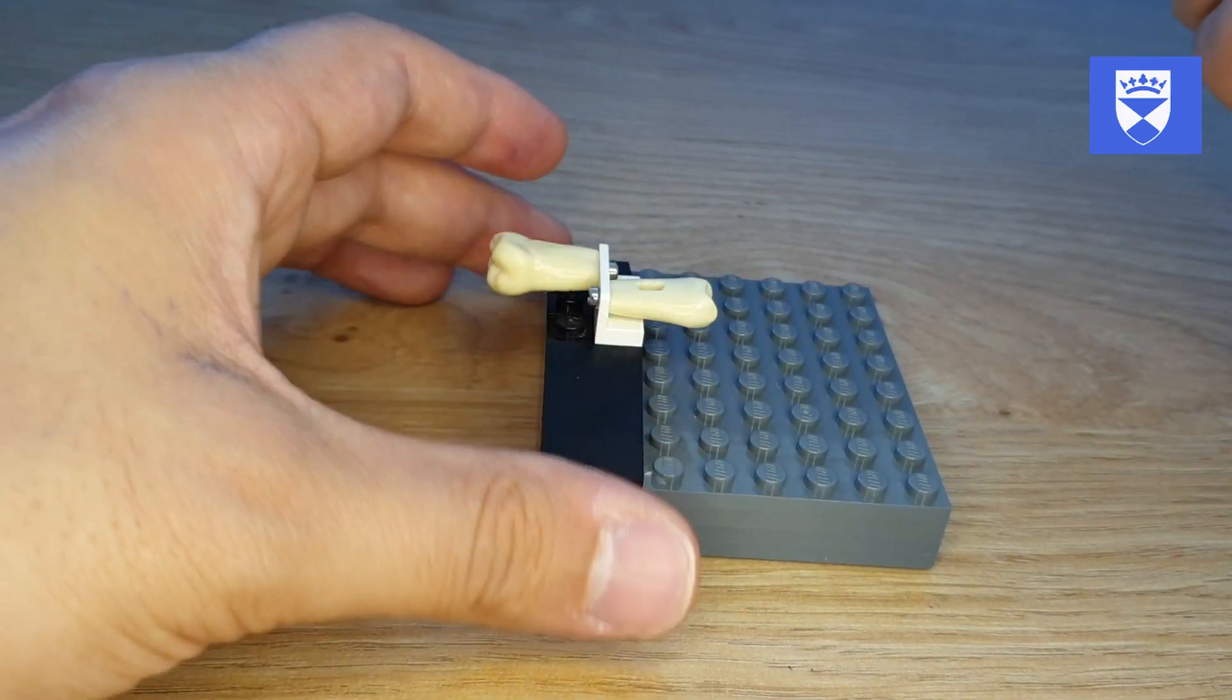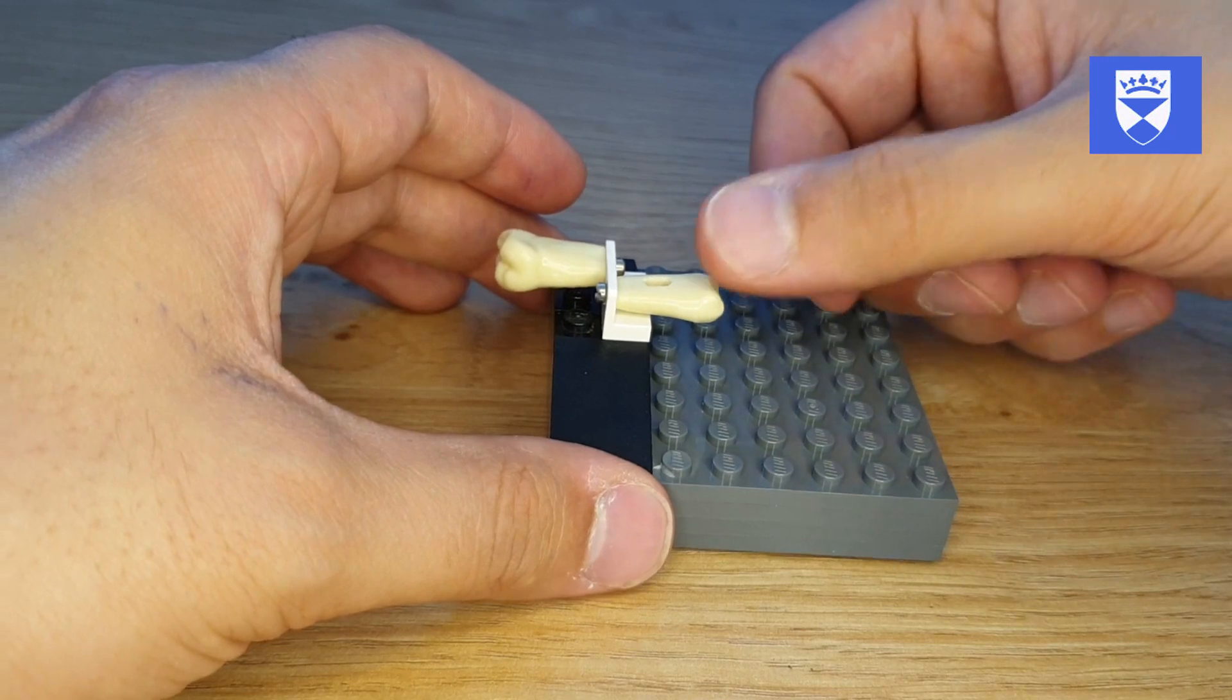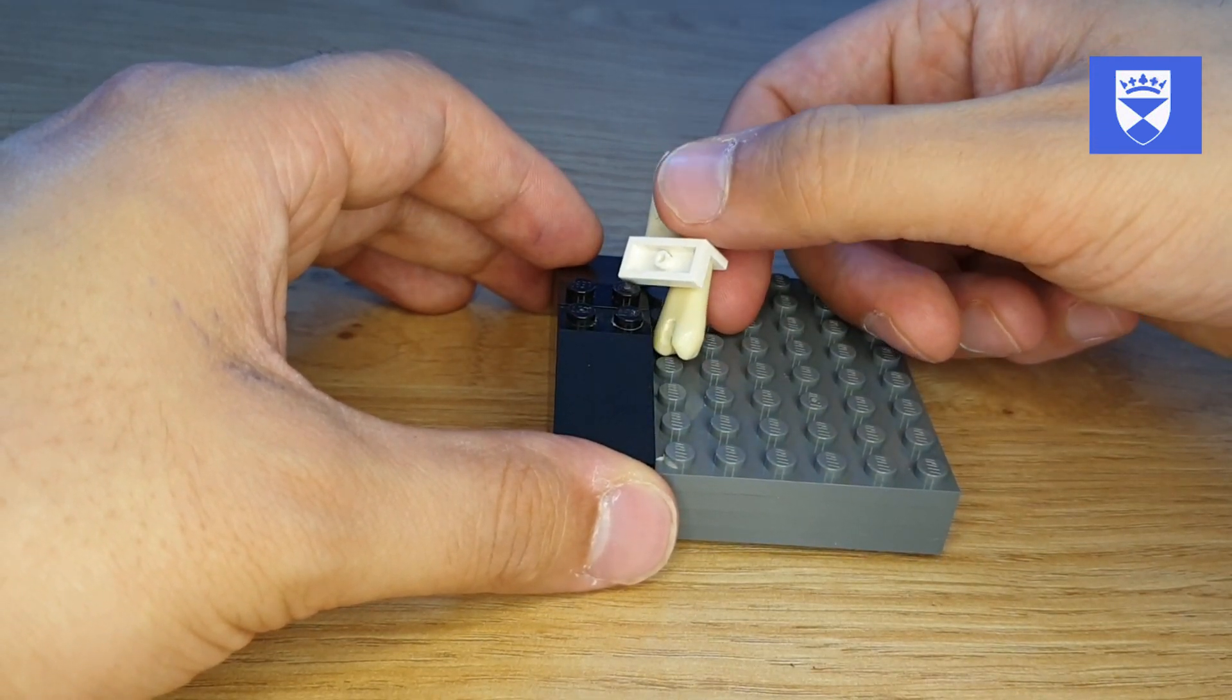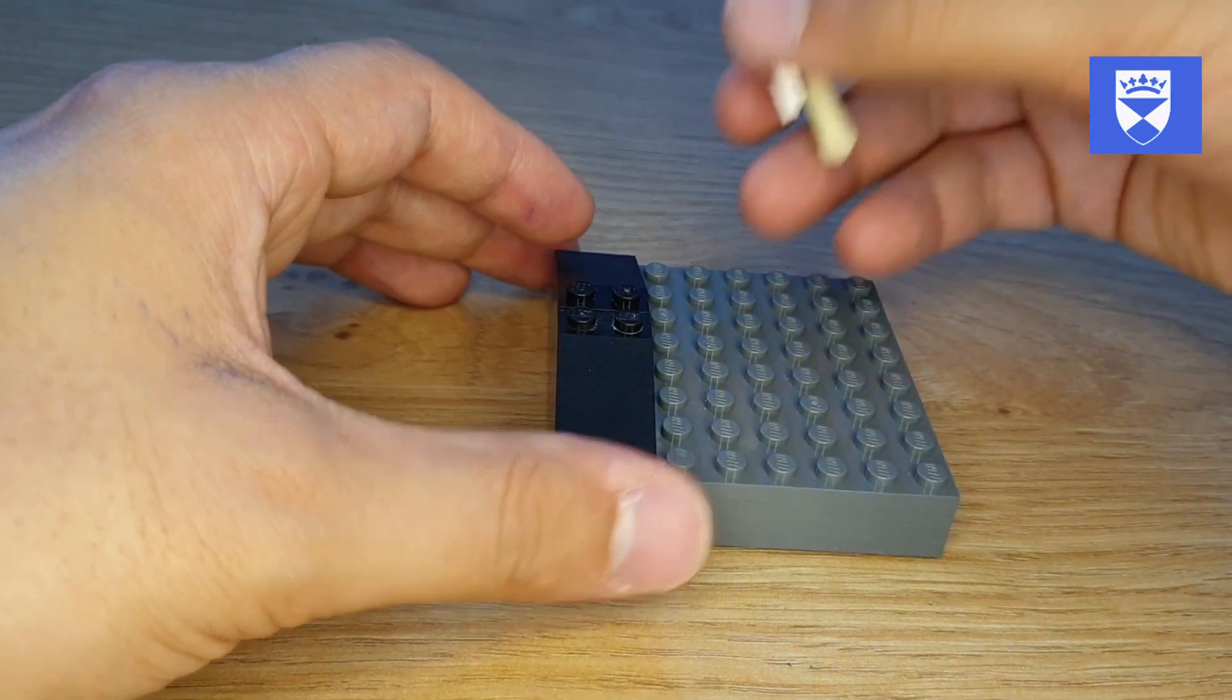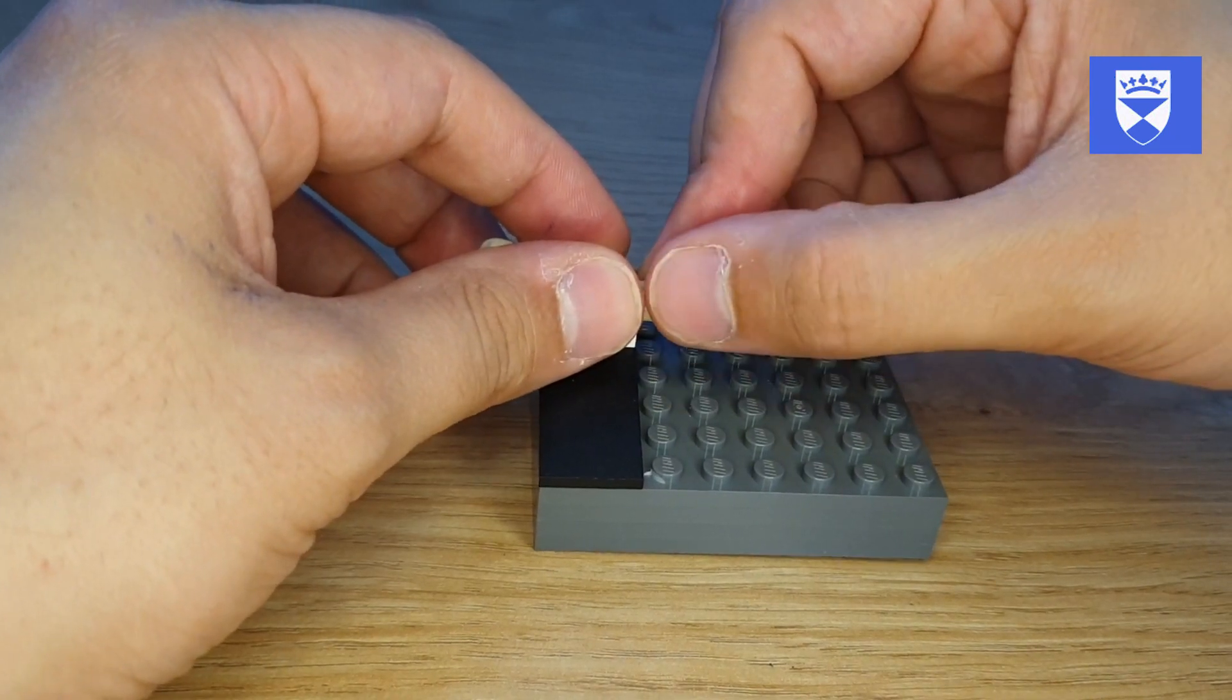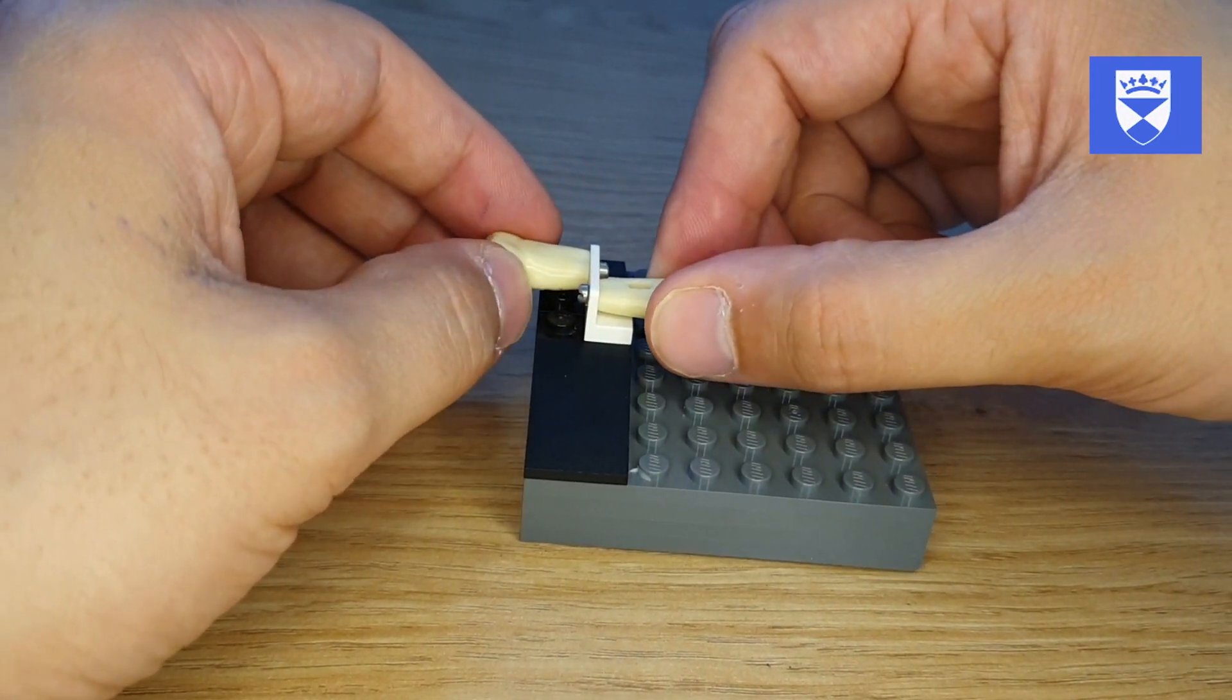There are a couple of advantages to the system as well. If you apply too much pressure to this, the system falls apart, and that in itself can give the students some idea as to how much pressure they're actually applying with a handpiece.